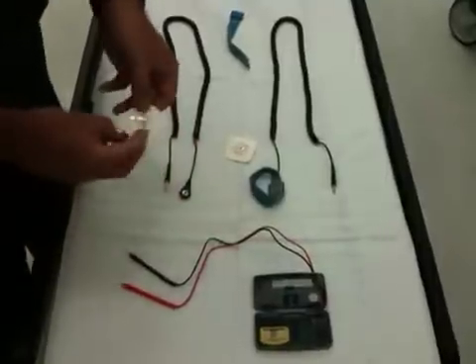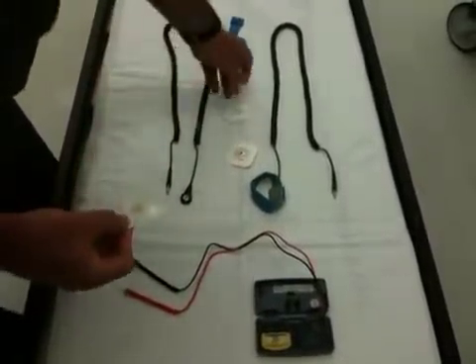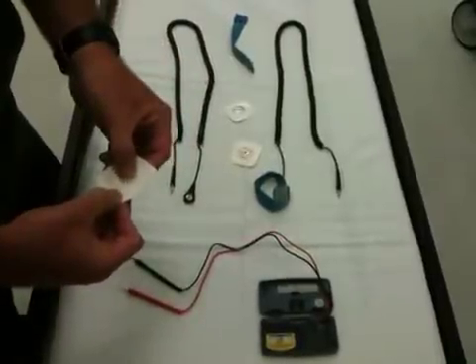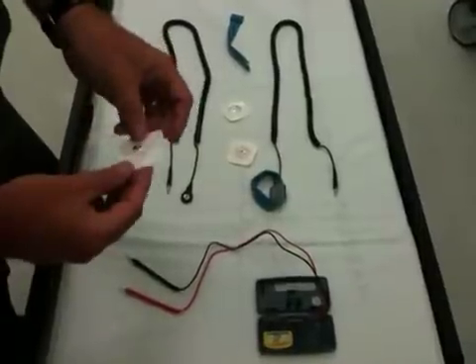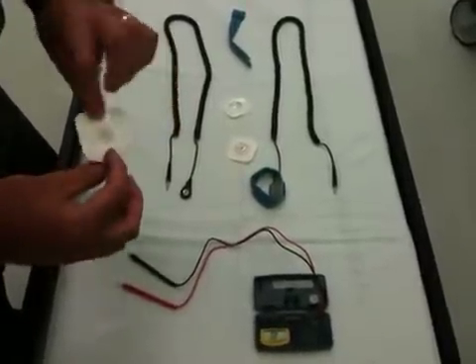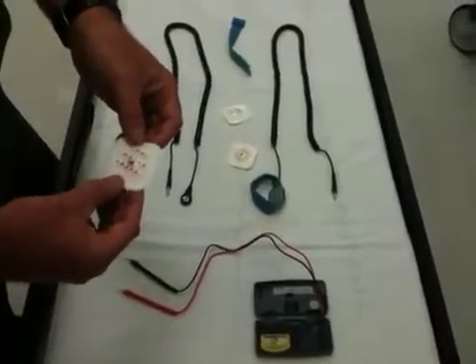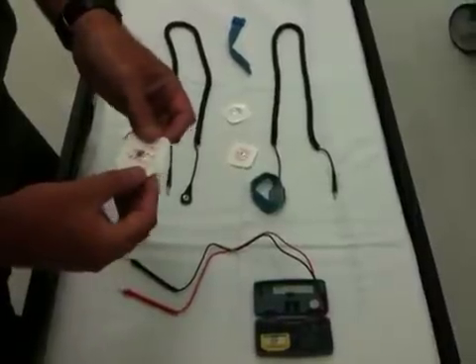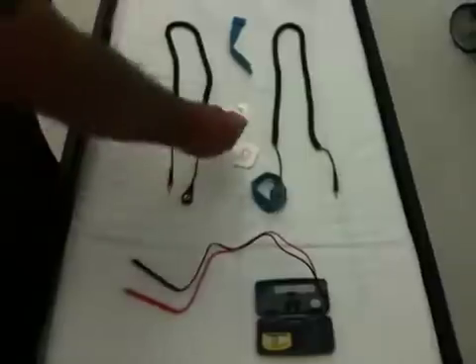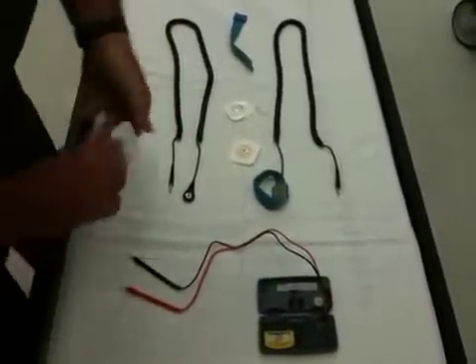Some people are a little concerned about these — concerned about the inside. There's a little bit of a lubricant there for a good electrical connection, and there is some foam sticky here. However, I've gone over this with my safety director and hyperbaric medical director. They're both happy with using these. We've used them quite a bit over the years and we don't have any problems with safety using these.